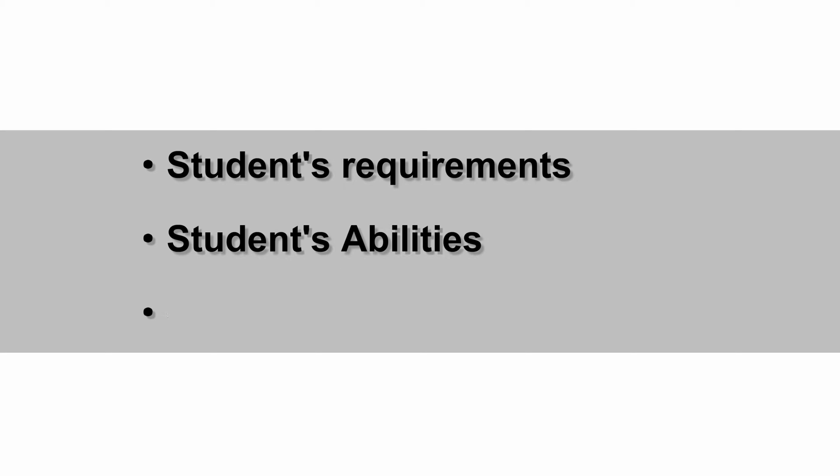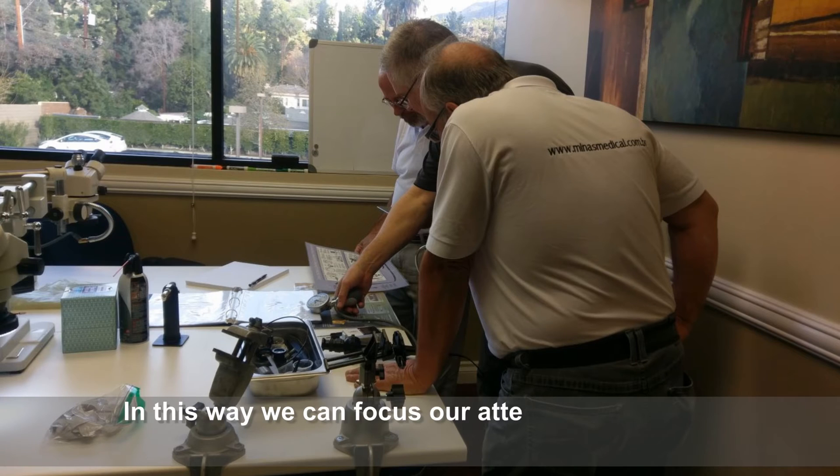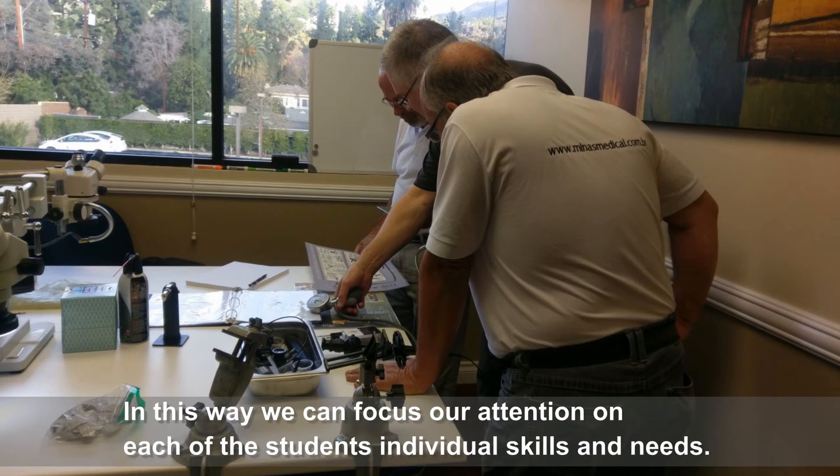This training is based on the student's requirements, abilities, and needs and is offered through a custom tailored curriculum to accommodate you. It is designed in a smaller class size for a more apprentice style training environment. In this way, we can focus our attention on each of the student's individual skills and needs.